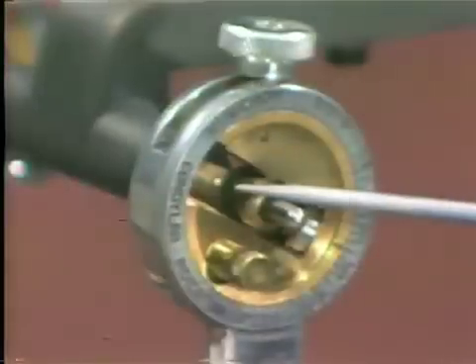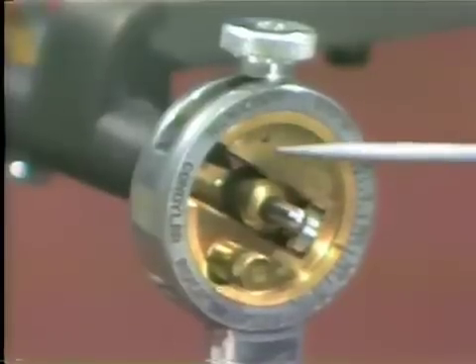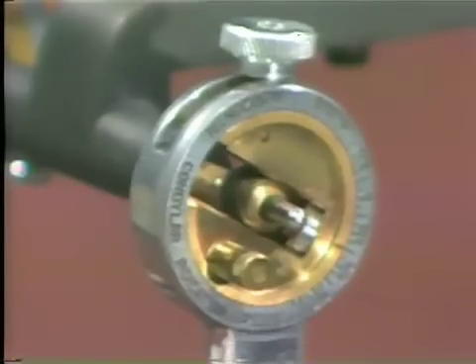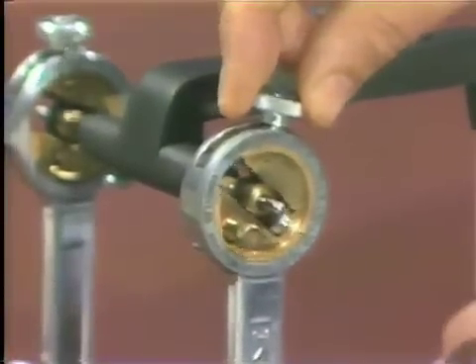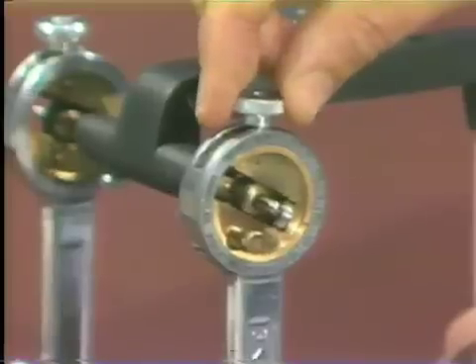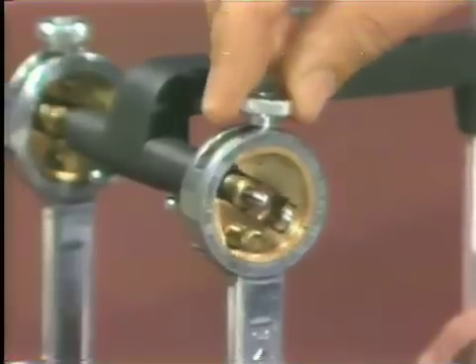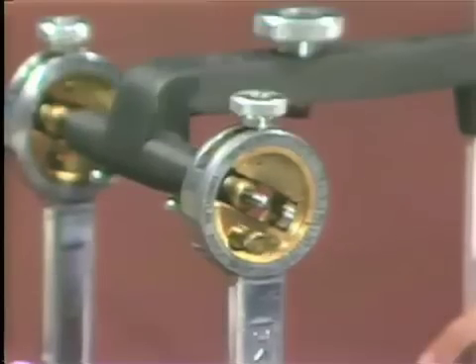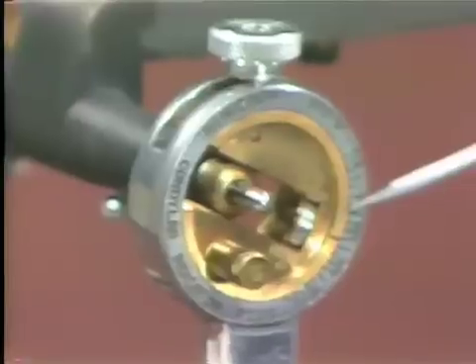This element of the articulator is called the condylar element. As inscribed on this element, it is called the horizontal condylar guidance. By loosening this bolt and nut on the top part of the articulator, it allows us to move this element. When the patient's protrusive record is placed on the articulator, this part moves in the posterior vicinity and this element is rotated until the record is interdigitated, then tightened, and one may read the actual mechanical equivalent.